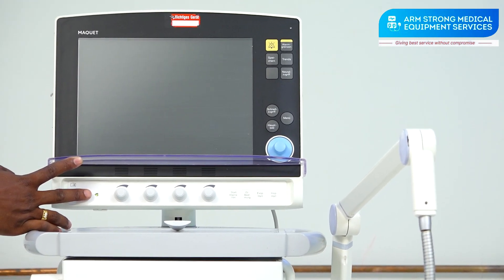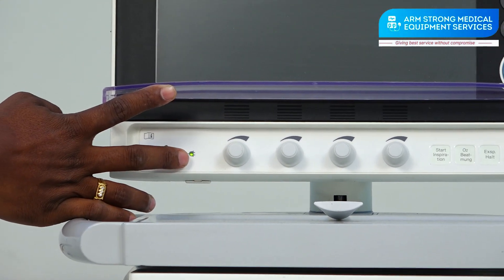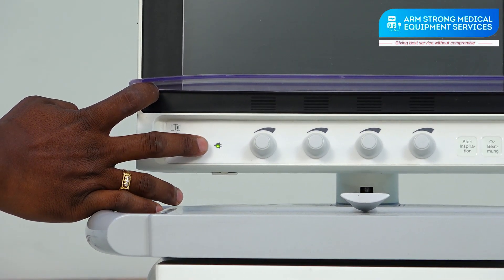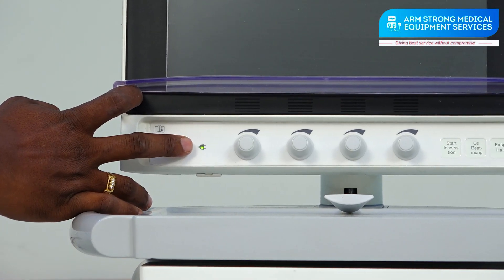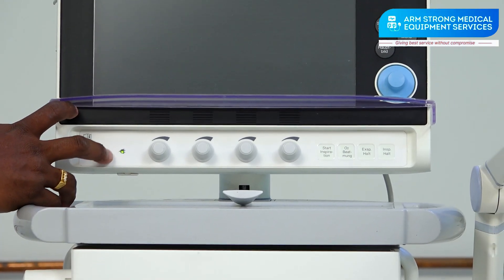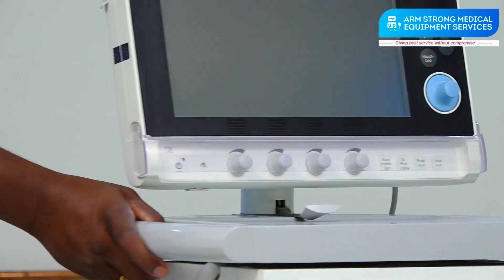First, we are connected to the mains power — you can confirm by checking this. See here, the green LED light is glowing, which means you are connected to mains power. If you are not connected to mains power, the battery backup will switch it on, but checking this indicator first makes it easy to know whether it is connected or not.